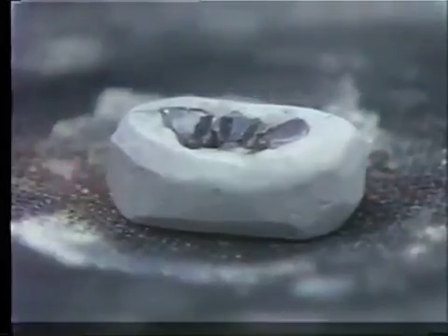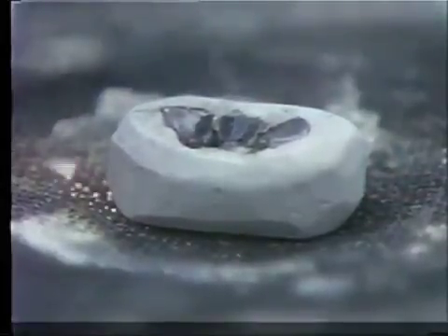You'll notice that we have antifluxed the lingual surface of this anterior bridge. Note that we did not use a lot of antiflux — just a strip on the central incisor, on the pontic, and on the cuspid itself. We've kept the antiflux away from the gold-soldered joint area so that we can flow the solder in.